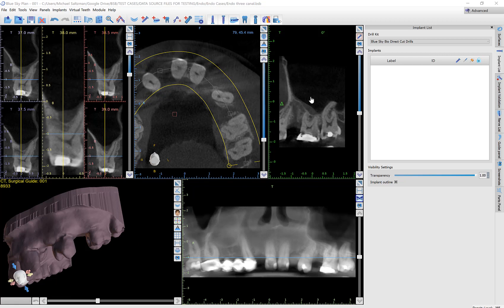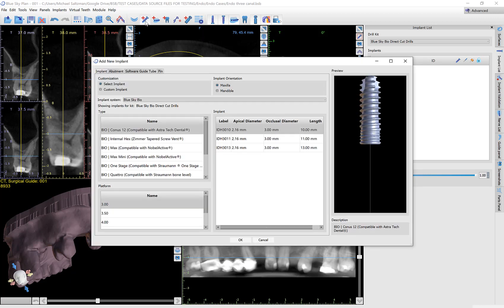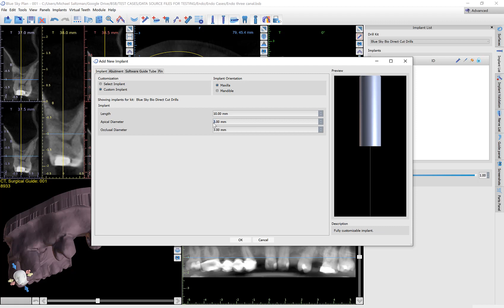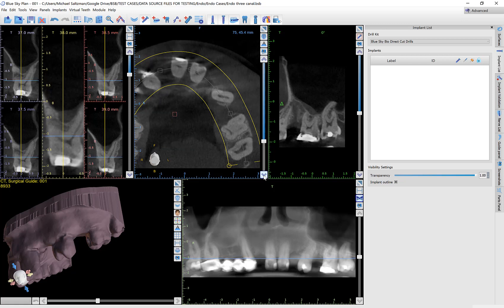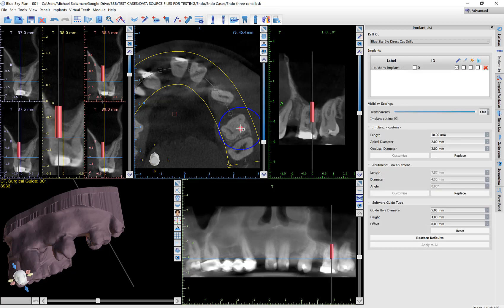Now we're going to be placing an implant — the implant essentially is going to be representing the drill, specifically the point or the depth to which the drill reaches. I clicked on Add Implants, we're dealing with the maxilla, and I'm going to click Custom Implant. The diameter of the implant should be set to the diameter of the drill — for demonstration I'm setting both to two millimeters. I'll click OK. In the top middle view, I located the point showing me the bottom, or the depth to which I'd like the drill to reach, and I left-click to drop the implant — our representation of the drill — in that location.